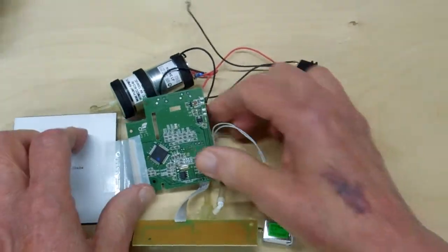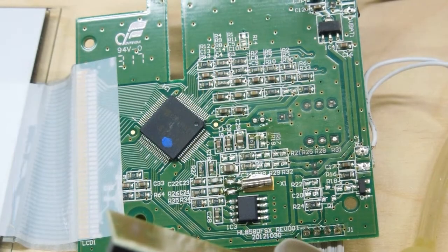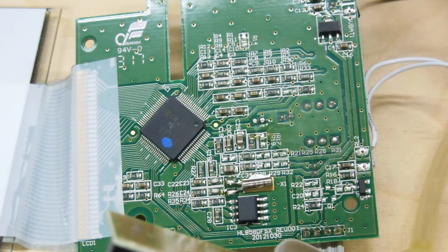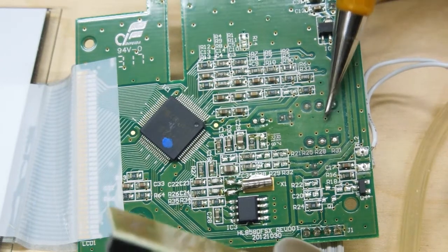This is the circuit board on the other side. Not much to see — a bunch of surface mount components. The heart of the mechanism. And that air hose plugs into that little black connection on the other side.